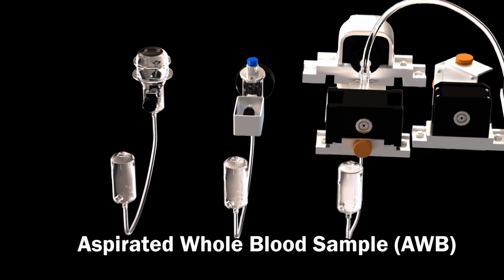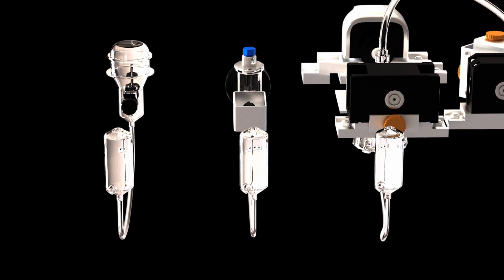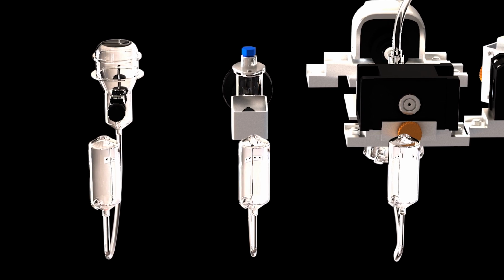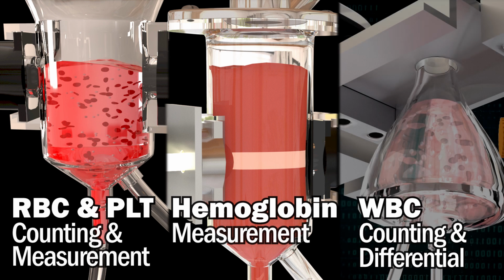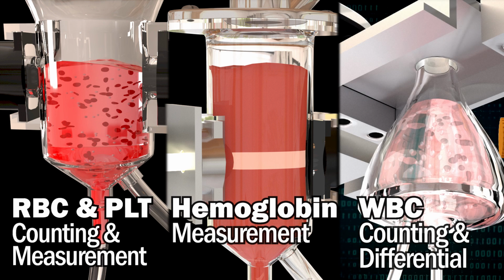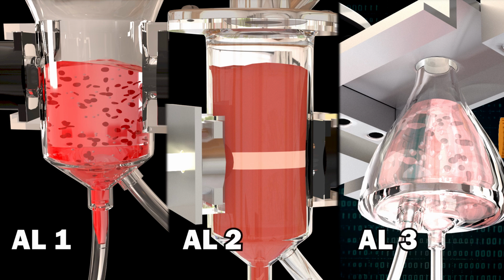The aspirated whole blood sample, AWB, is split into 3 different aliquots for the 3 major parts of the CBC analysis. 1. Red blood cell and platelet counting and measurement. 2. Hemoglobin measurement. And 3. White blood cell counting and differential. We will refer to these as AL1, AL2, and AL3.